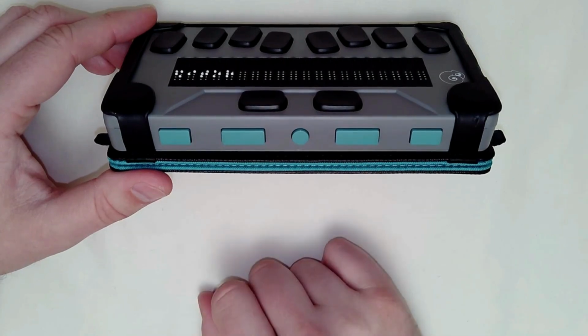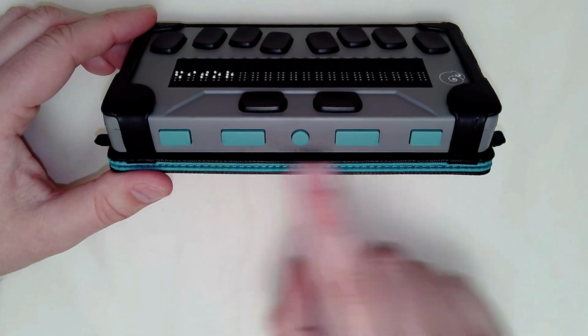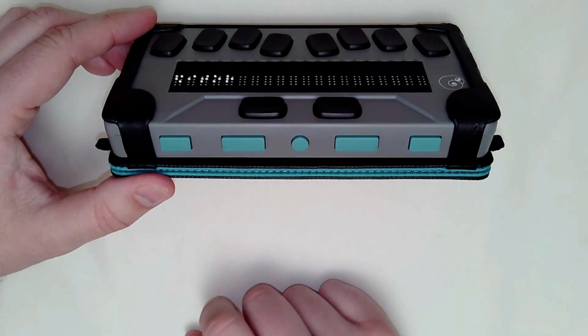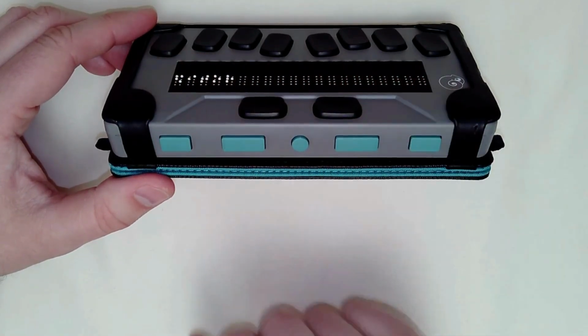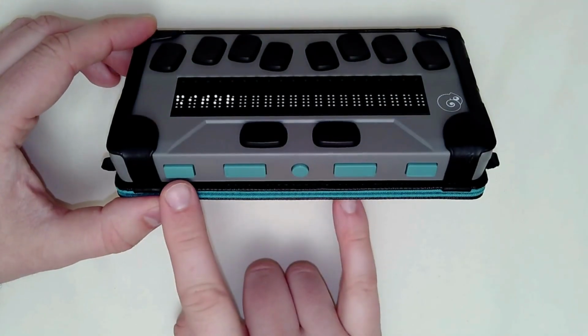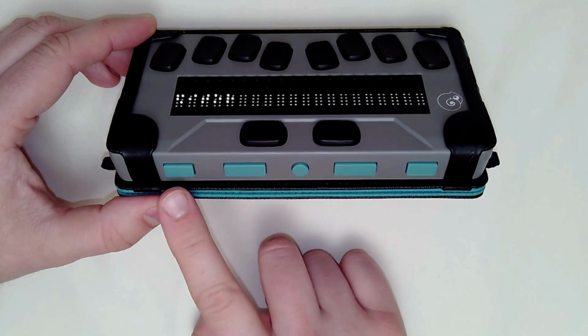The braille display panning keys will be your slightly longer rectangular buttons, and the previous and next will be the far outer ones that are slightly shorter than those panning keys. Those panning keys will help shift you to the next set of 20 cells for continue reading along a document. So, next or previous item, far right, far left, thumb keys there. So let's give those a quick try as well.